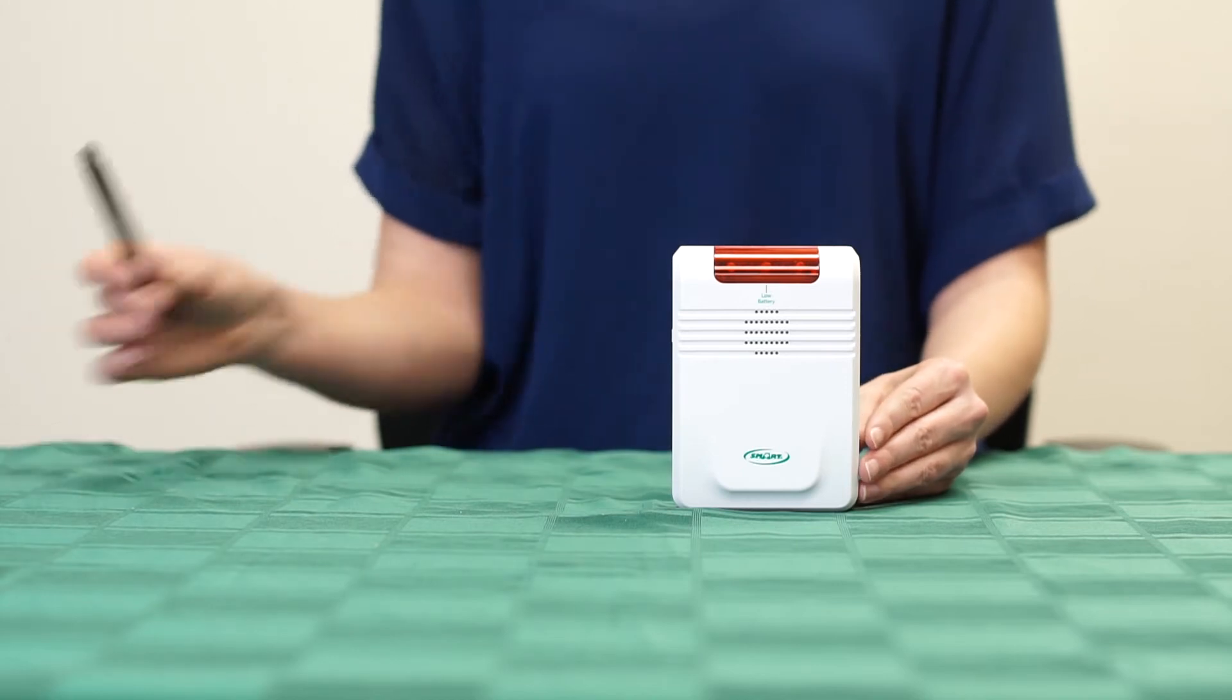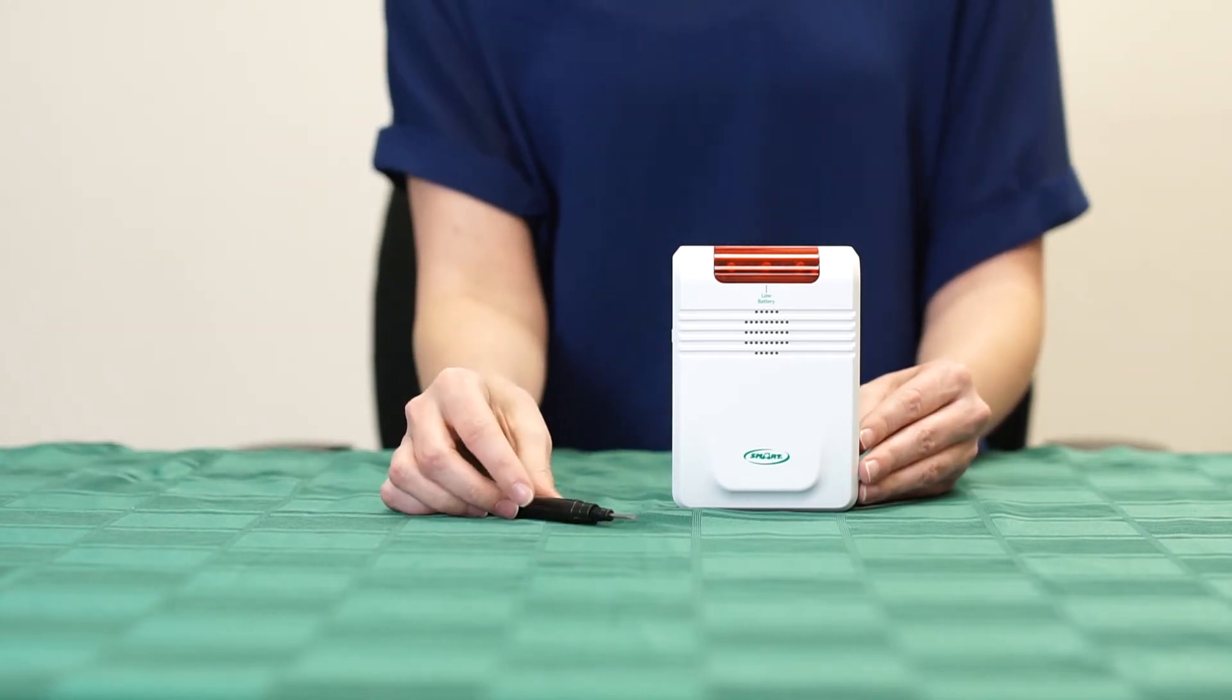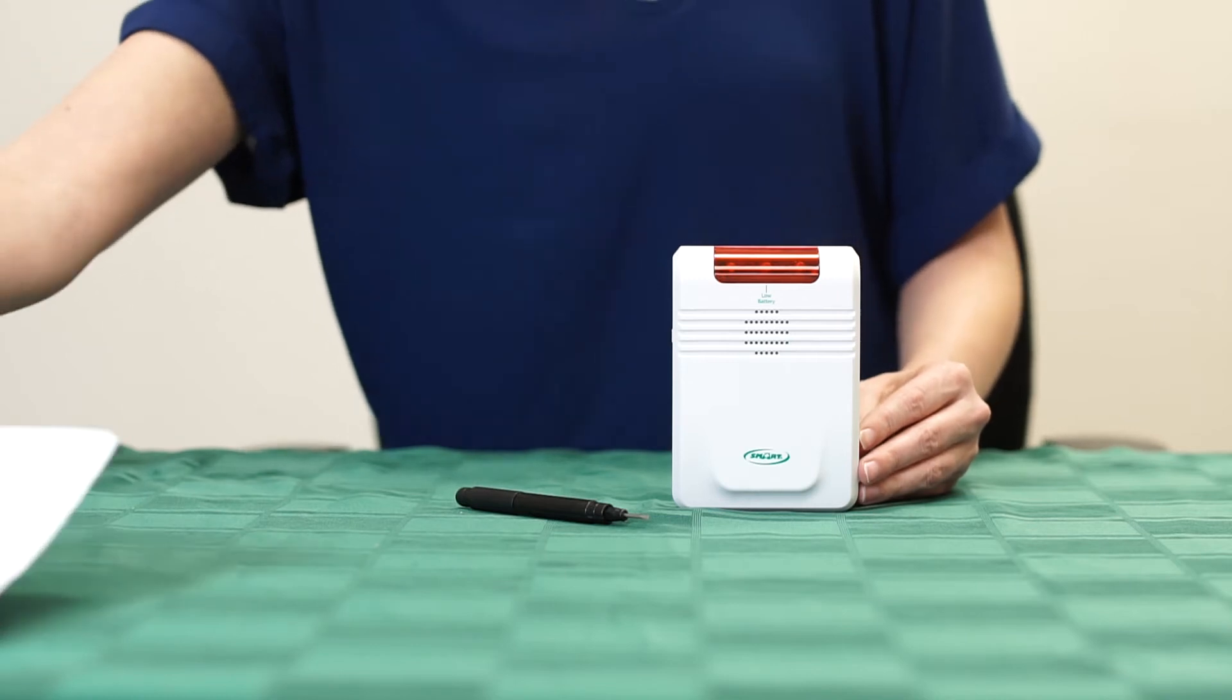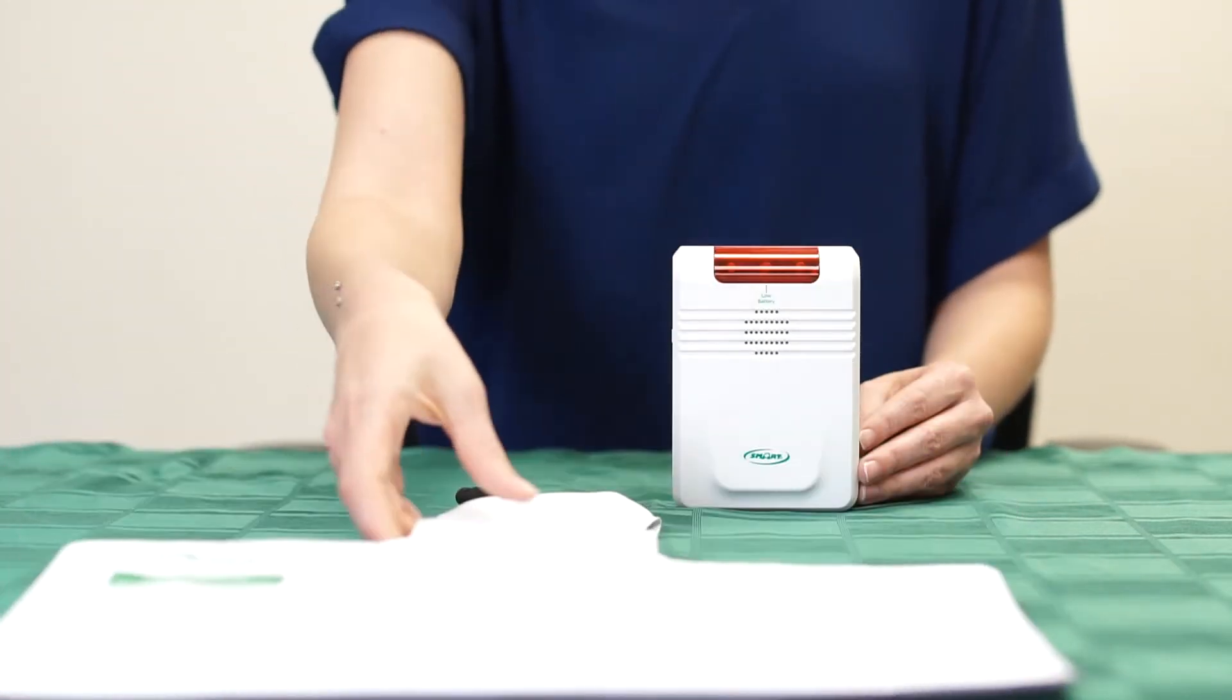Now, you will need a small tool like an eyeglass screwdriver or a paper clip. Also, make sure that the component or components that you will be programming into the monitor are close by.